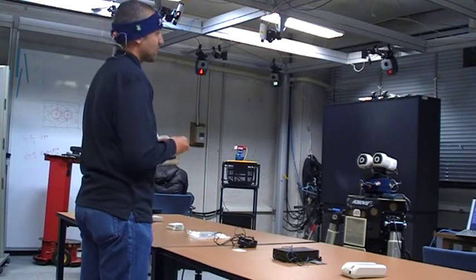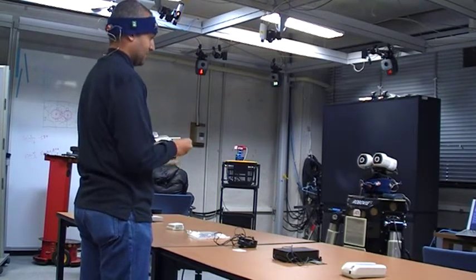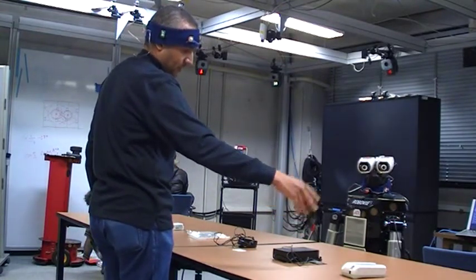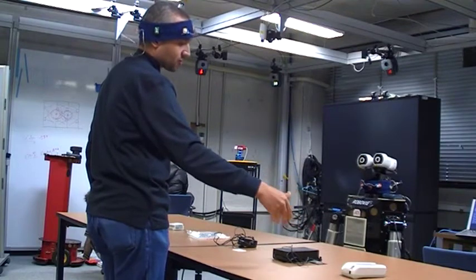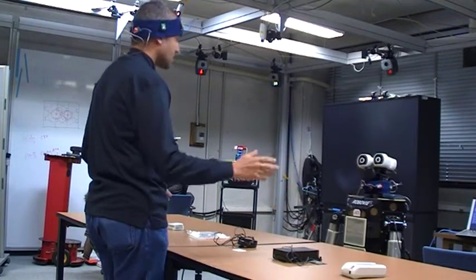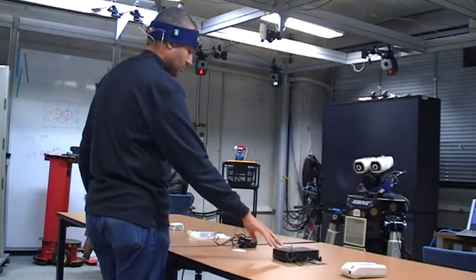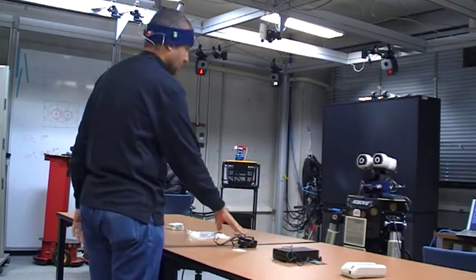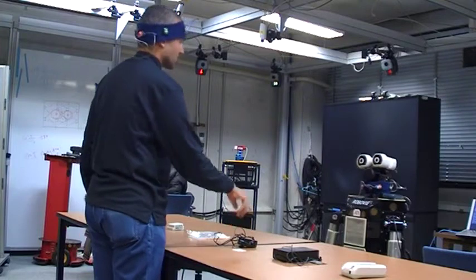This device is used to measure physiological data. The main part is this one. It's used to measure all kinds of physiological data. Actually, it can use 32 types. This is the power supply, and you can also connect not only this one, but this one also. This one is used to charge batteries.